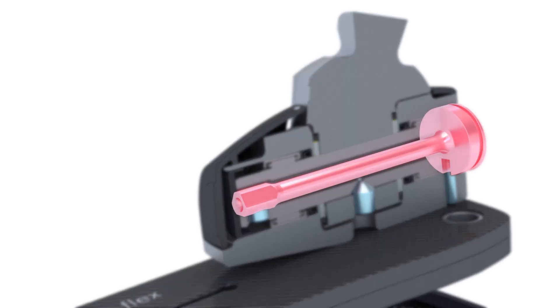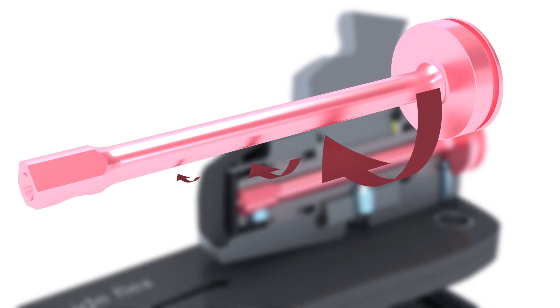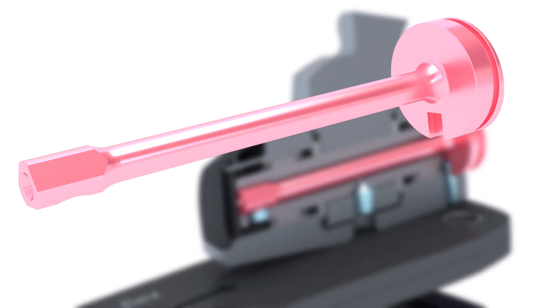It is twisted along its length when the foot adapts, for example, to uneven ground. The innovative torsion bar is made of titanium and is very durable.